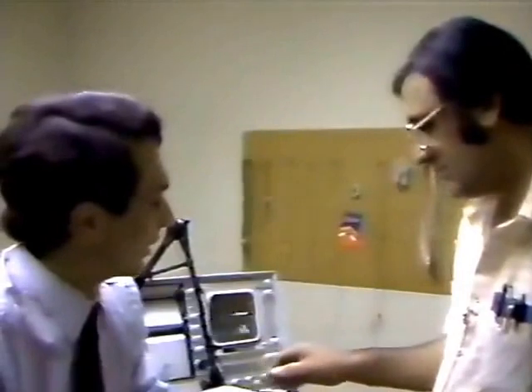In a previous program we also discussed the fact that you do internal medicine and endocrinology, which is disease of the glands of the body, but let's stick today with neurology. It's very interesting — I love seeing all of these electrical gadget machines. In dermatology we don't use too many of these nice machines. The first machine I'd like to look at is what I've heard called the electromyograph. What does that mean, electromyograph?